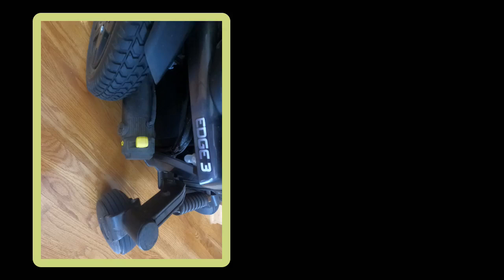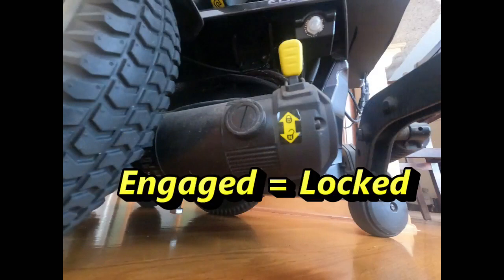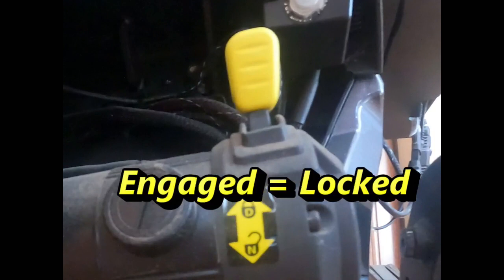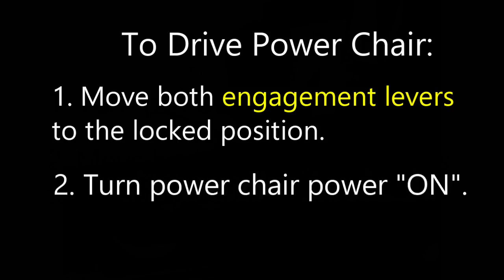One last important control in your PowerChair are the Disengage and Engage levers, one on each drive motor. In order for the PowerChair to be driven, both motor controls must be in the engaged position. In the unlikely event that you experience a PowerChair problem, such as completely dead batteries, your PowerChair can be manually pushed by a caregiver, but only if the levers are in the disengaged position and the joystick controller is in the off position. After the batteries are charged, move the drive motor levers back to the engaged position before attempting to drive the PowerChair.